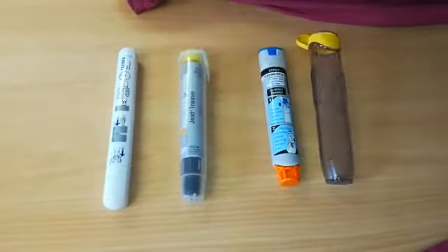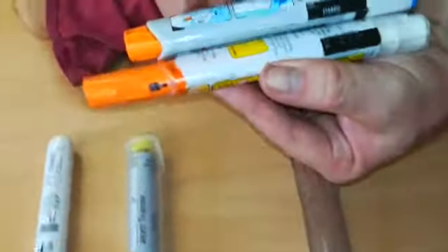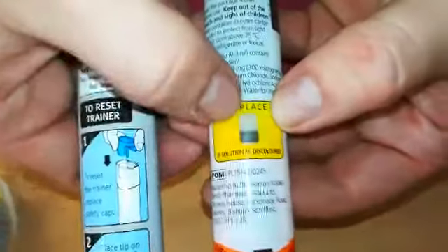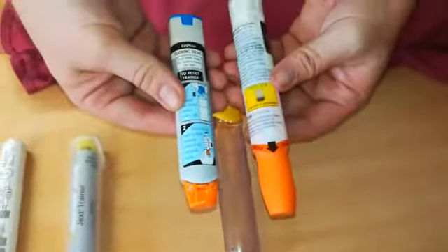When we're looking at it and taking it out, we're checking to see what condition it's in. I'm going to put it next to one that has been fired. We are looking for the lot number, the expiry date, and the window. We're looking to make sure it's not cloudy and there are no leaks or anything coming from it. And that's your pre-use checks.